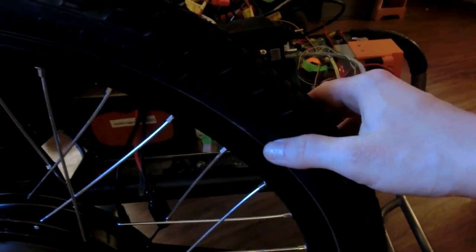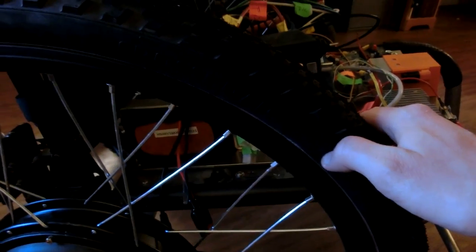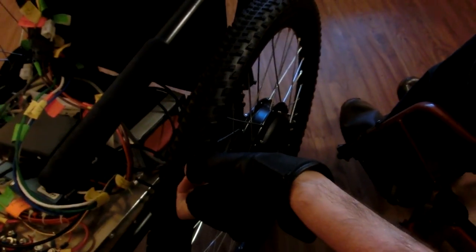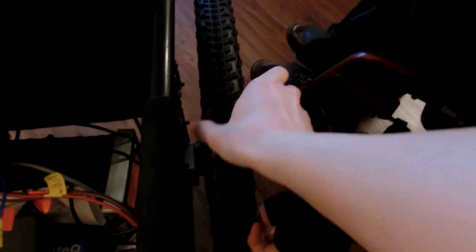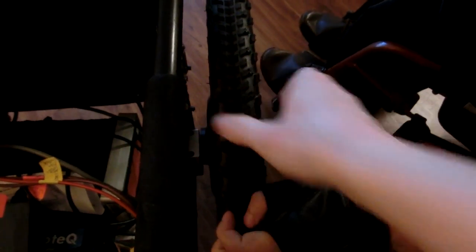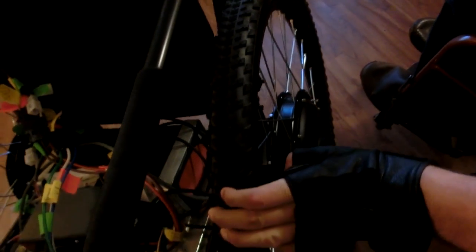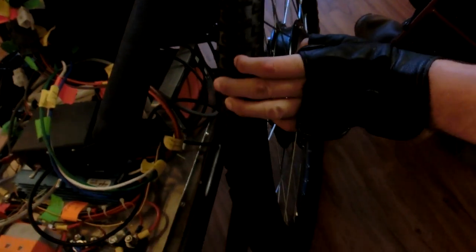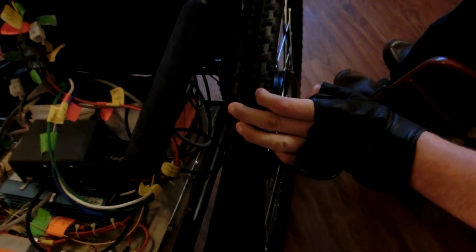Well then that's pretty good. I think that's pretty similar to what those other ones are. Because when I received this I just received the rims and the hubs. I went down to Trailhead Cycleries and they mounted it up and everything.